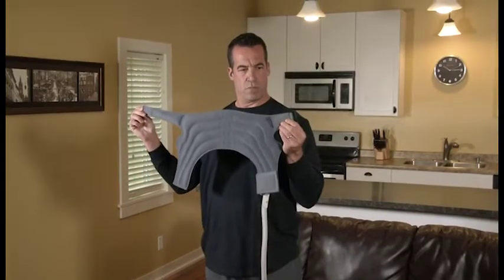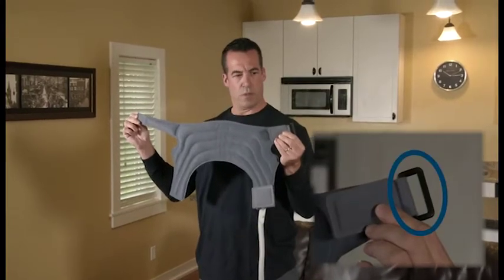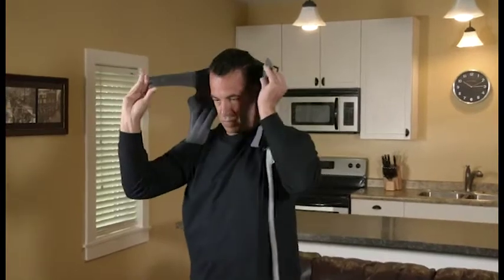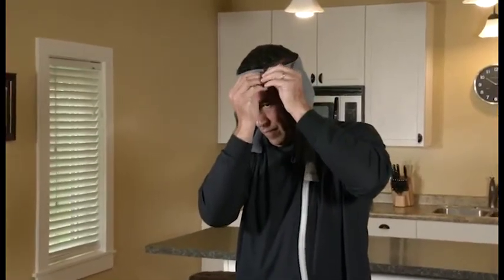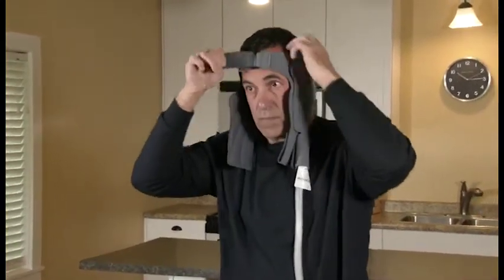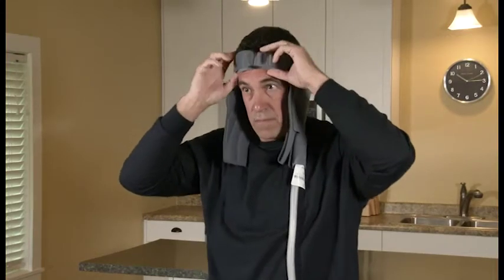To apply the head garment, start by holding the garment so the forehead strap with the plastic D-ring is located at the top of the garment. Place the garment around your head, aligning the forehead strap so it runs across the middle of your forehead. To secure a snug fit, pull the forehead strap through the plastic D-ring and attach the hook fastener to the garment.